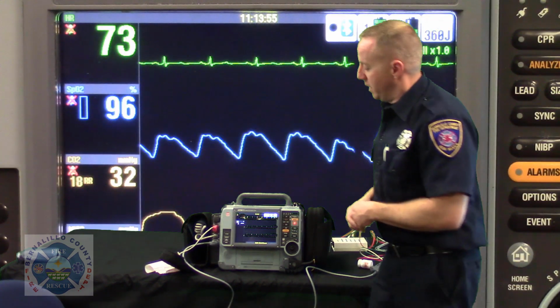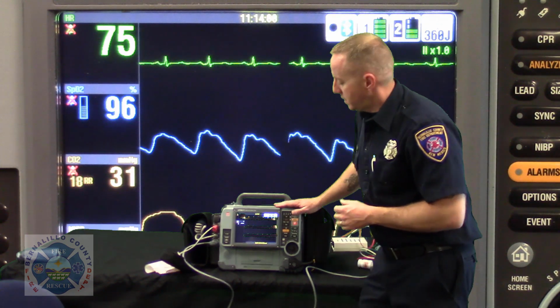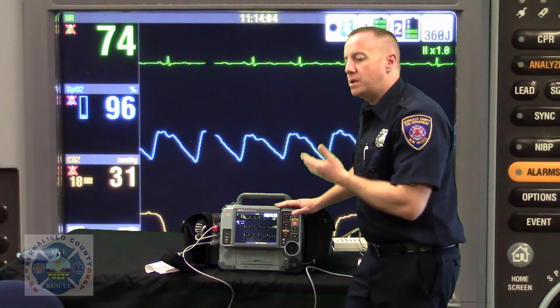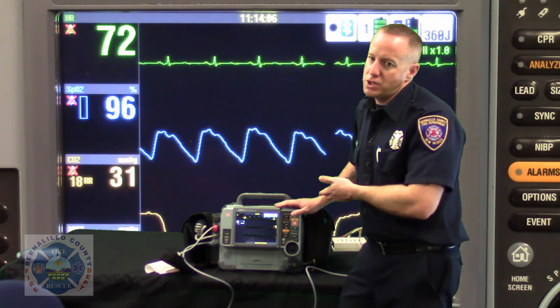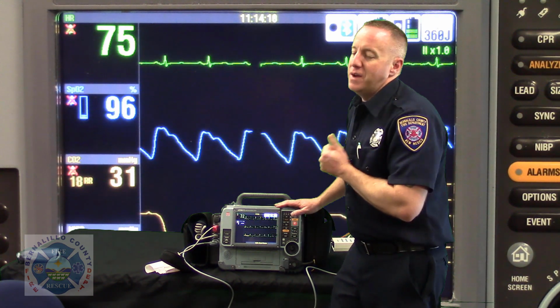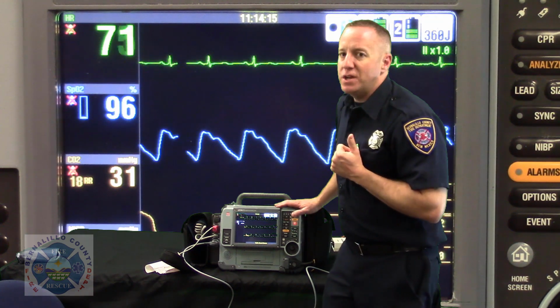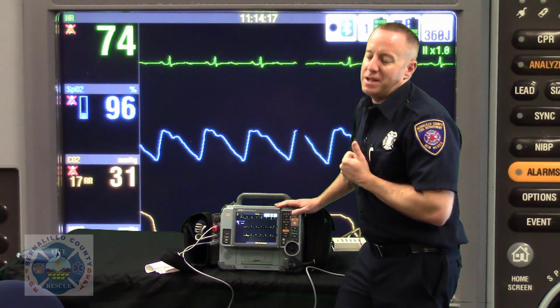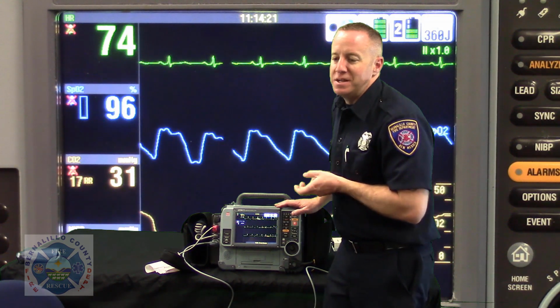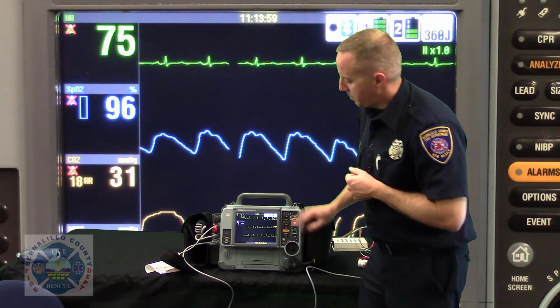And so here's how we're going to do that. Now, I'm going to put a patient name in here, but how do you get faster at doing this? That's simple. We talked about our pre-monitor checks at the start of our shift every day. I enter a patient name and a date of birth every time I turn this monitor on and do my monitor checks. I'll do the last name is A shift, first name is A shift, last name is monitor checks, and I'll put in a correctly configured birth date. And so let's talk about that.